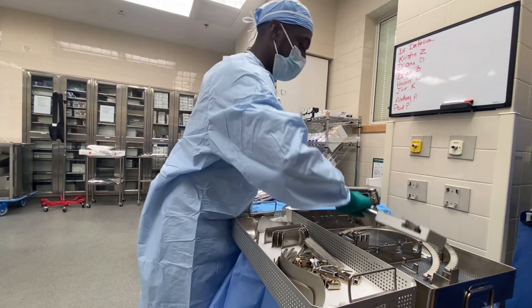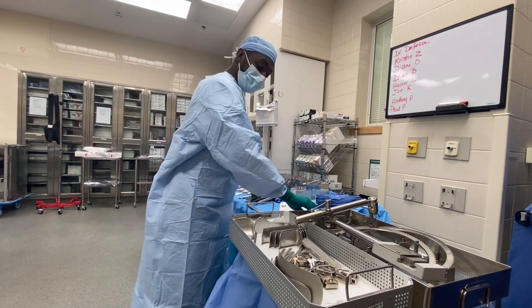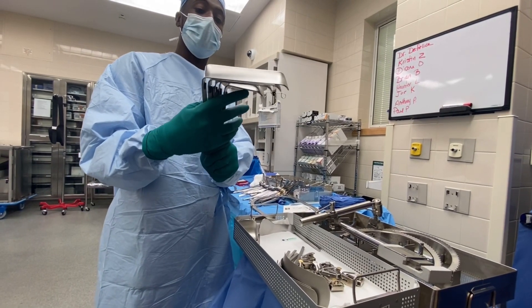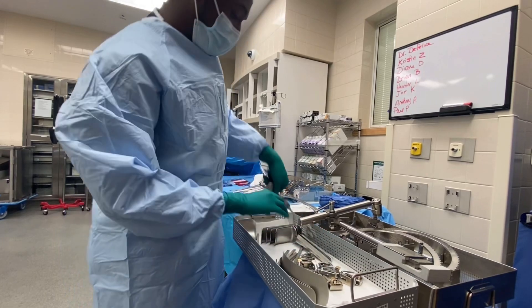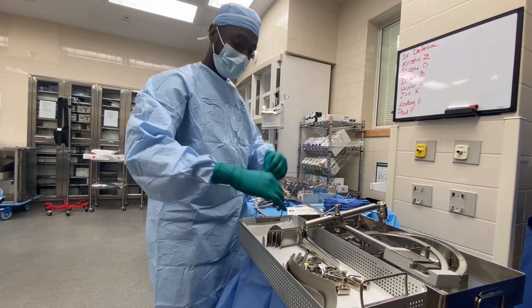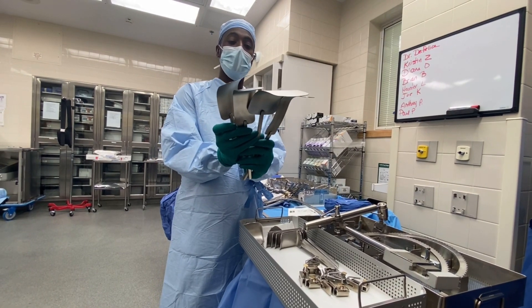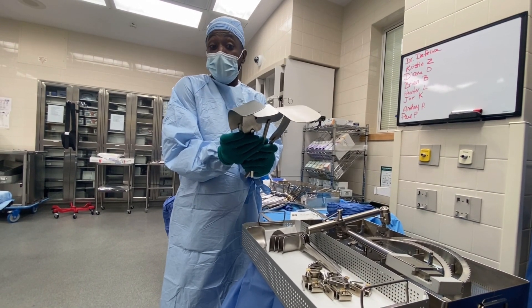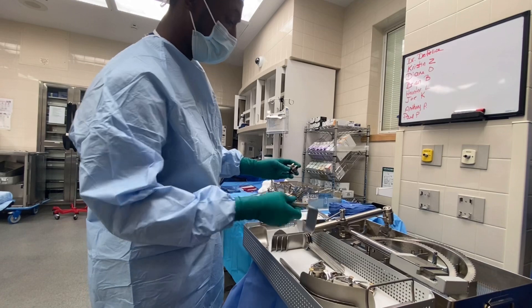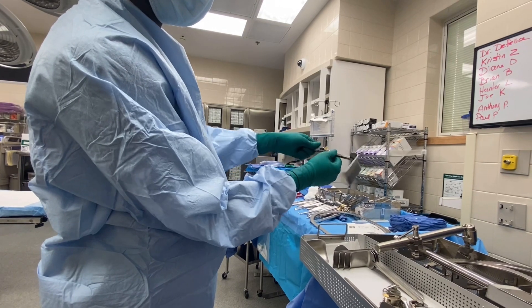While the ring is above the patient's abdomen, you'll give the doctors different types of blades. These are Richardson blades — you've got short ones, medium ones, long ones, a sweetheart retractor blade, a bladder blade, and then malleables in different sizes. If they say they want a malleable, ask what size — small or large.